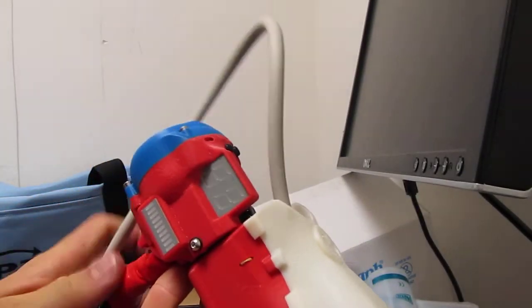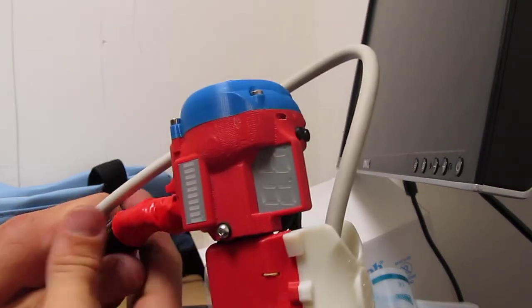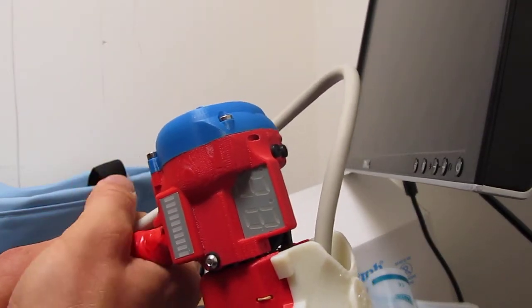Next, you'll want to take the cable and use the strain reliever by putting Velcro around it.